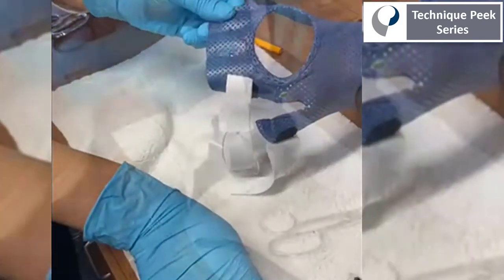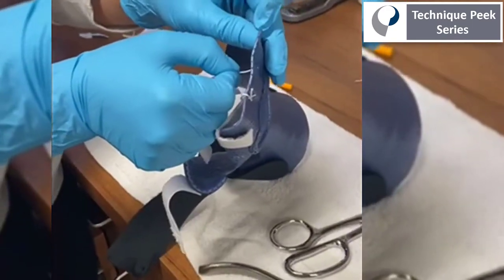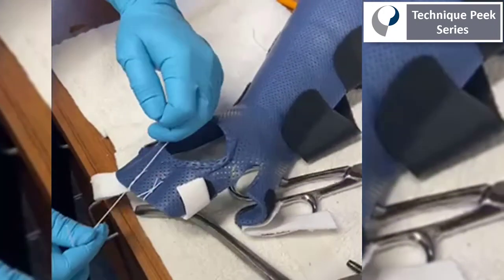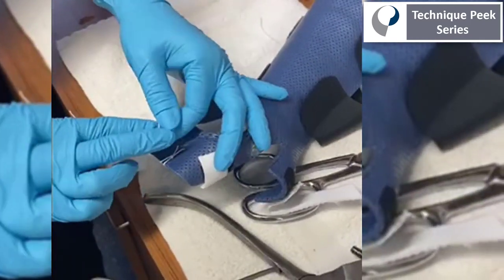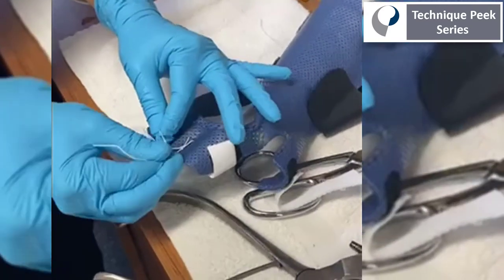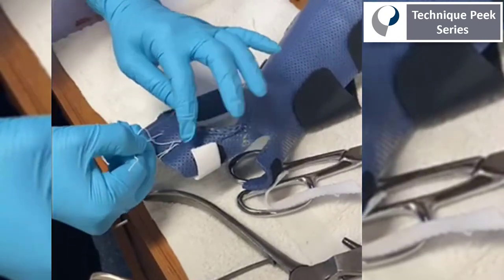This will create the troughs for each finger to rest in, similar to those loops you might get in one of those outrigger kits, except this is just one piece of material, so it's much easier to fabricate. The patient can just slip in and out of this as one unit, as opposed to having each individual finger go into its own sling, which can be challenging when you have no active finger extension after a radial nerve injury.